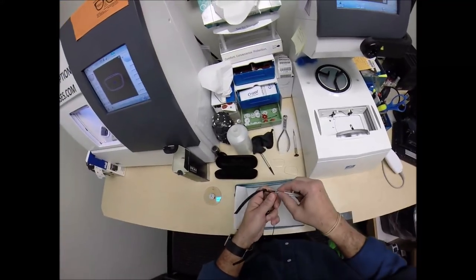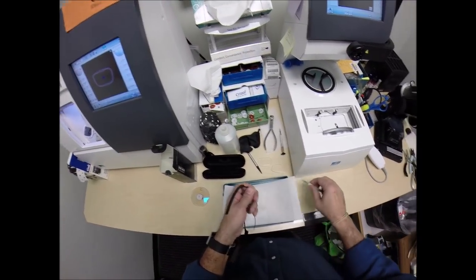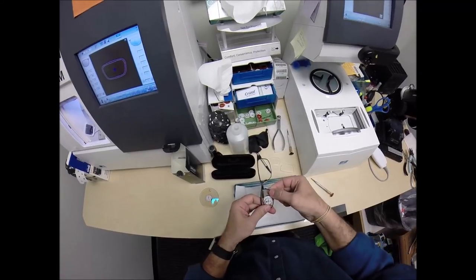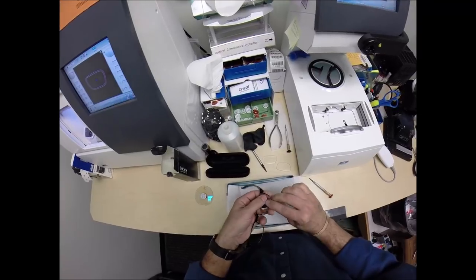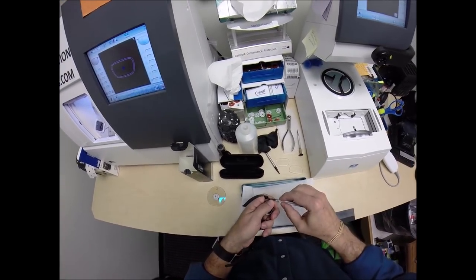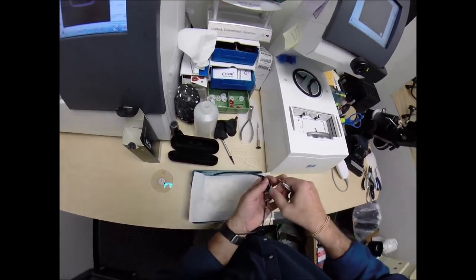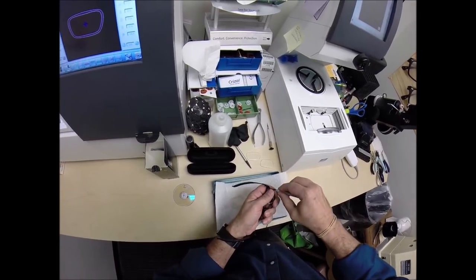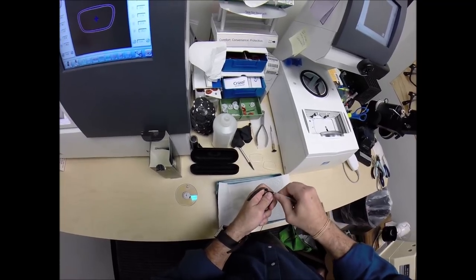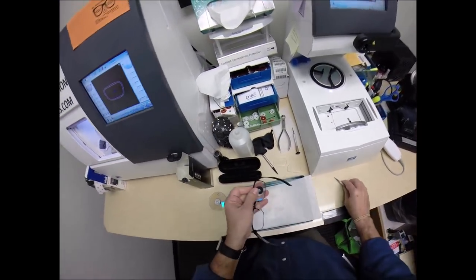It ain't going to happen, so I'm going to have to back it out a little bit more. Put my finger over the screw, and with my thumb pressed down here, until it goes in. Now I'm going to do righty-tighty. But again, if you take the screw all the way out, just make sure you hold the frame upside down while you insert the lens. Now I'm going to tighten everything back up to make sure it's closed all the way, and it is.